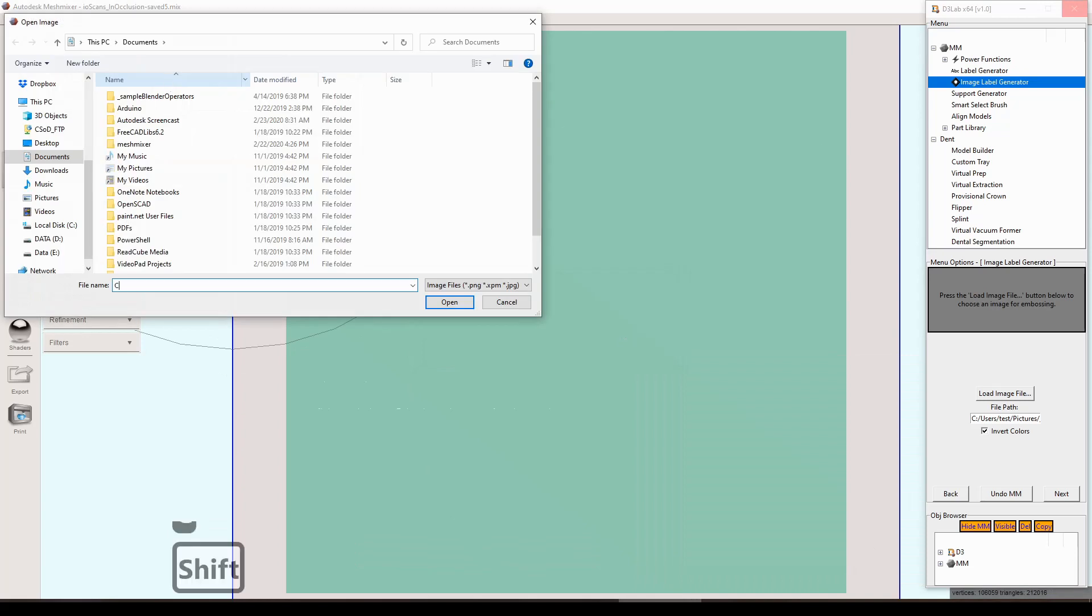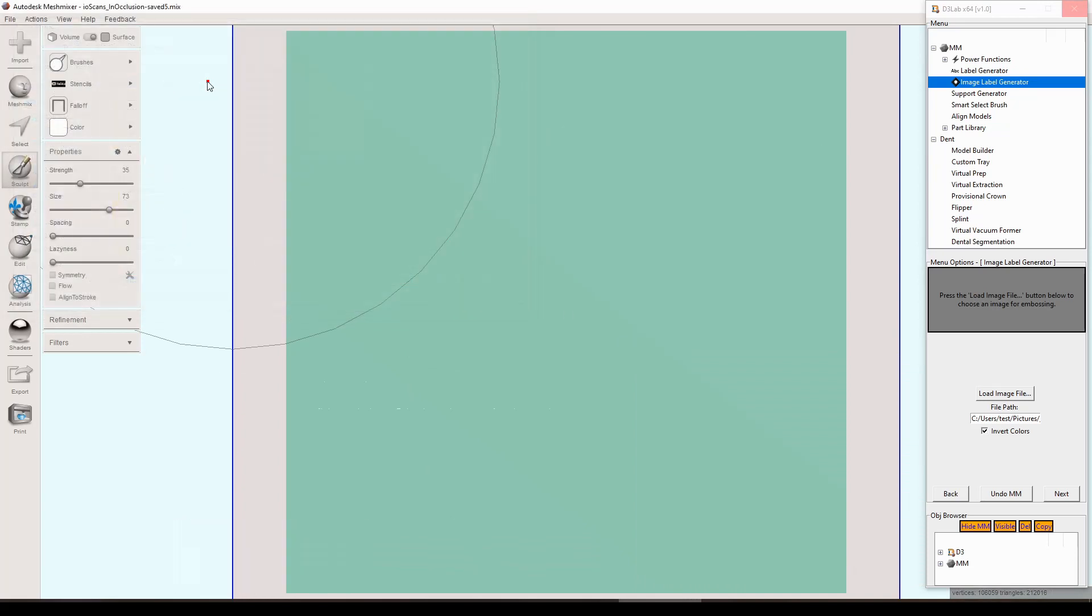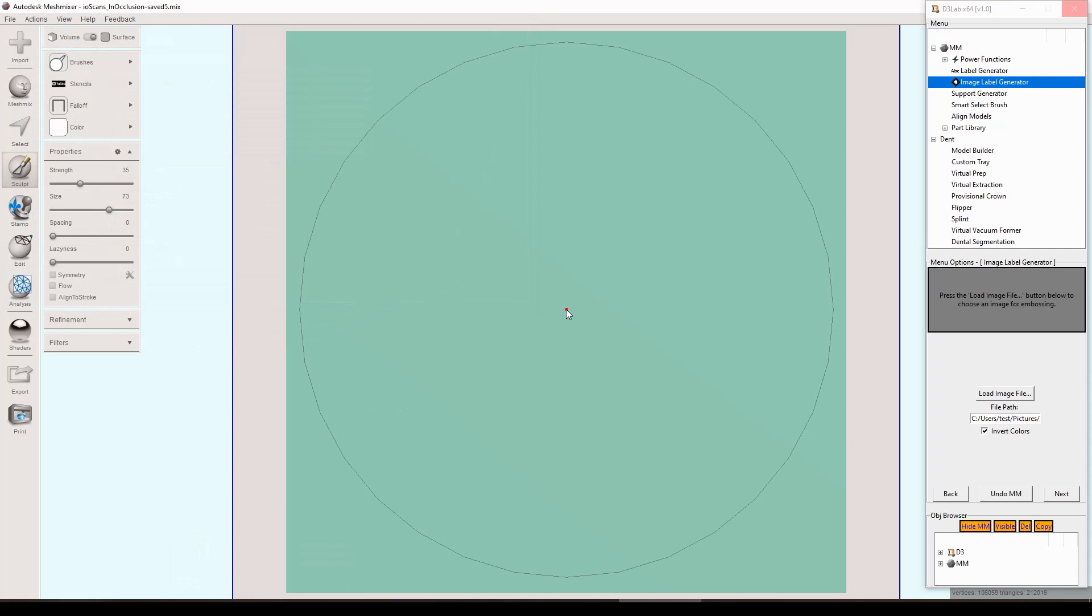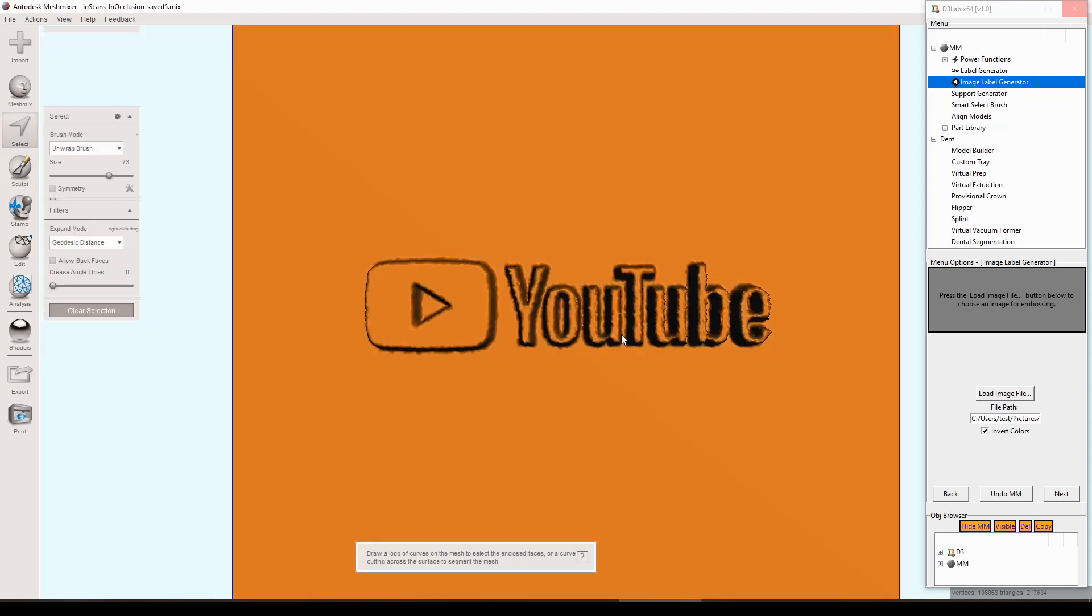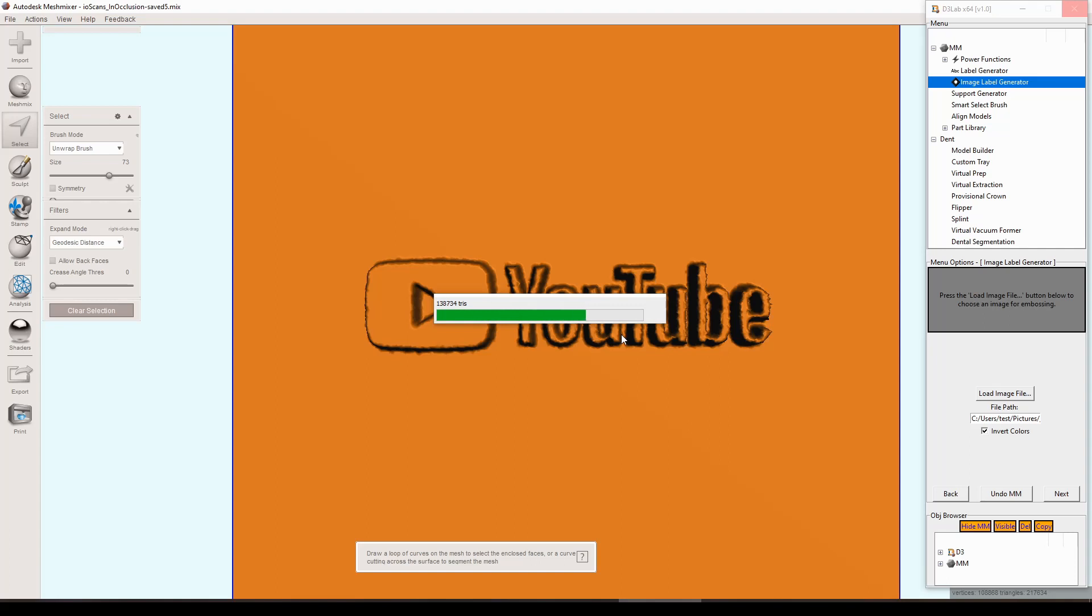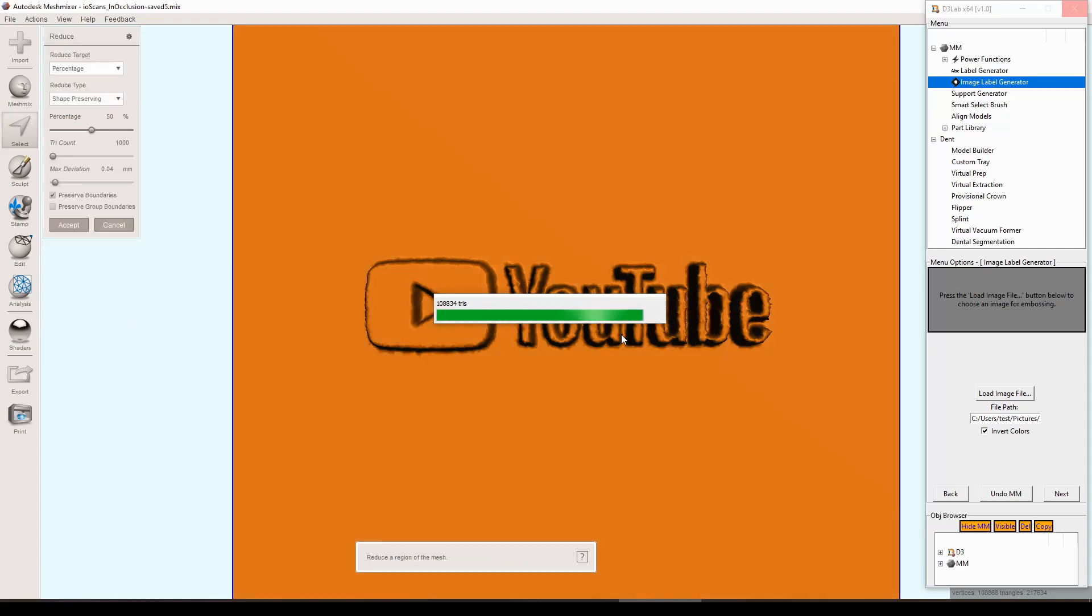We'll go through all the same steps in appearance to the text label generator. You don't want to be moving your mouse at all during this portion of the tool. It does a lot of series of clicks and things like that in order to get this stencil stamped on there correctly, so you just want to kind of stay off the mouse for this part. Let it do its thing and then after the step is completed you can go back to using the mouse again just so you don't interrupt anything on accident.